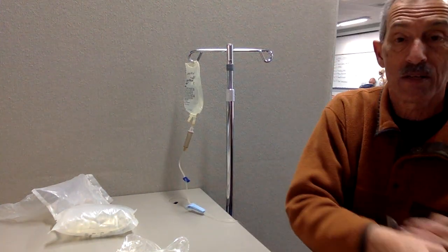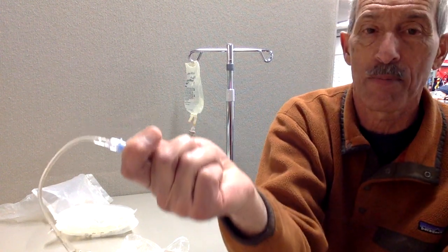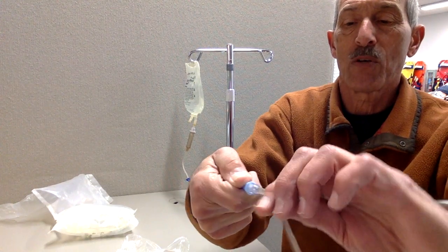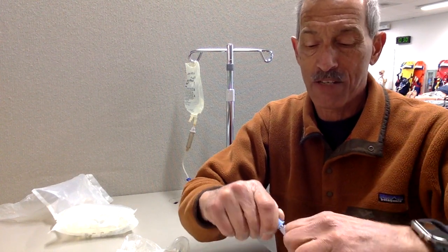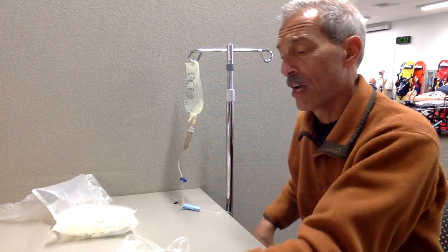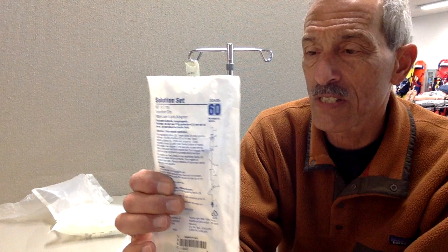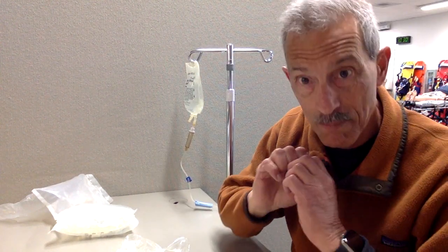You would hang this up in the back of the ambulance or onto an IV pole, then hand it to the paramedic. When the paramedic wants it, as the EMT you want to grab the blue tip and hand it to them this way — holding the blue cap — so all they have to do is pull it off and insert it into the IV, keeping everything sterile. Hand it to them backwards — kind of counterintuitive, but that way they can hook it to the patient. Remember: 60-drop mini drippers give very little fluid and are primarily for medication administration. The maxi dripper gives a maximum amount of fluids in the shortest amount of time. Hope that helps you out in the field.